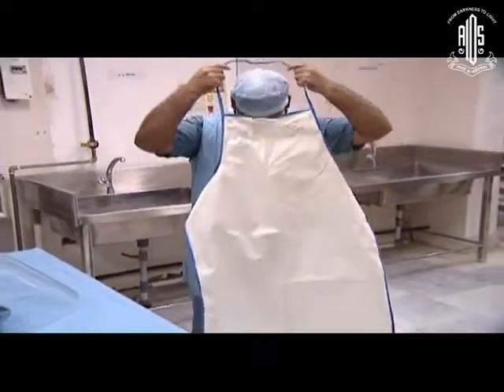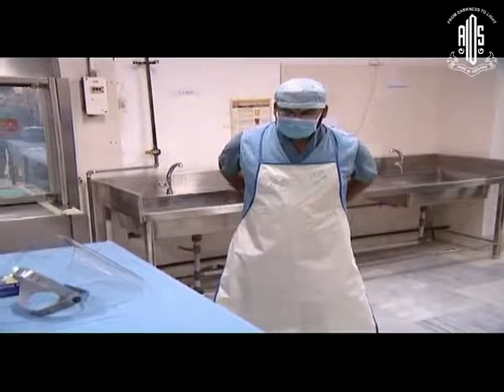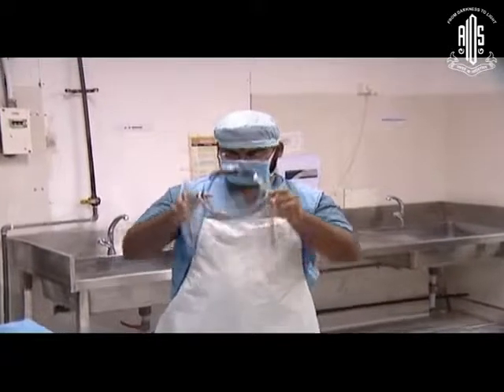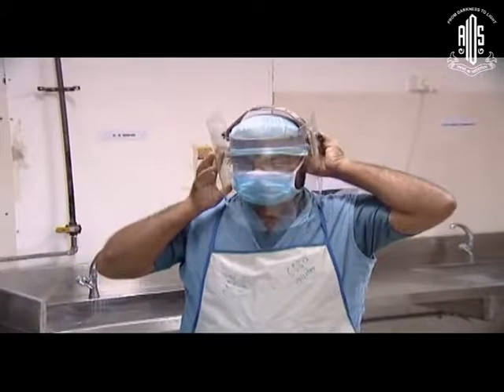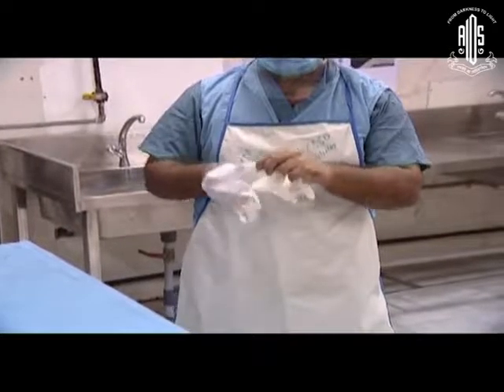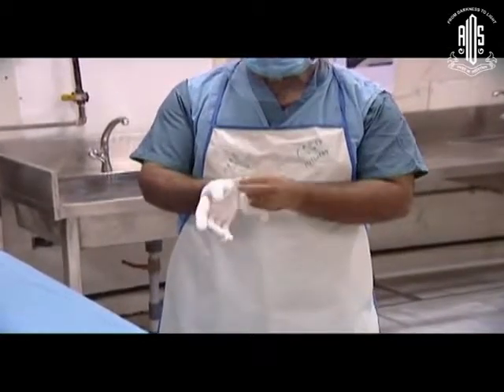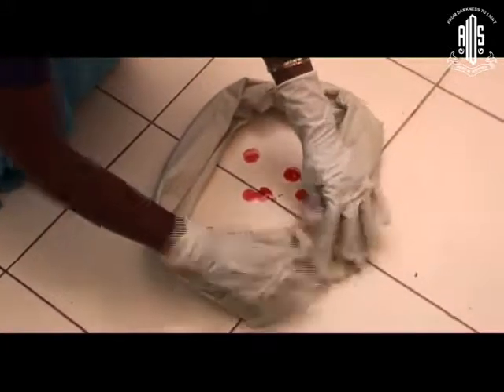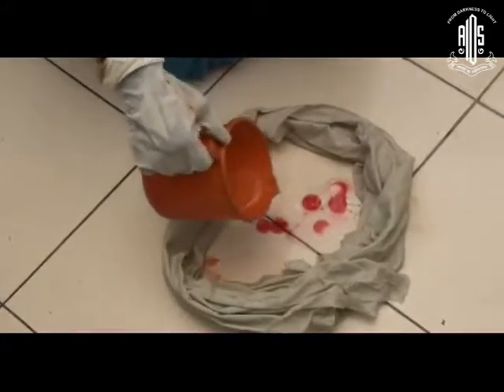This contact lens cleaning solution is enough to disinfect these lenses — just leave it for some time and clean. Whenever you are handling infected material, use protective gear under the personal protection equipment guidelines. In ophthalmology we may not need as much protection, but when doing surgeries like DCR you might spill blood. To disinfect blood, pour hypochlorite solution — the bleach solution — allow it to disinfect before you clean and discard it in the proper container.